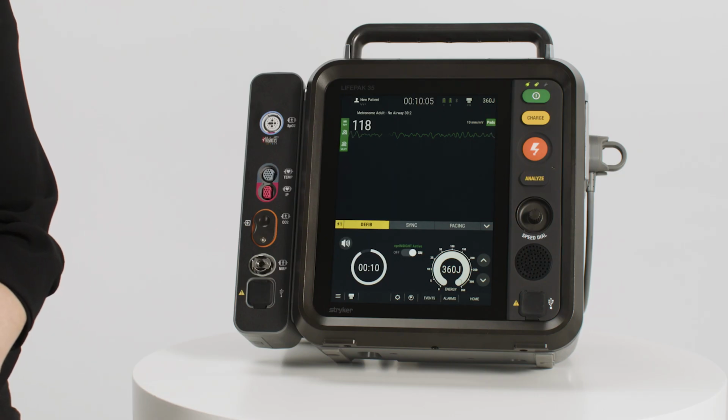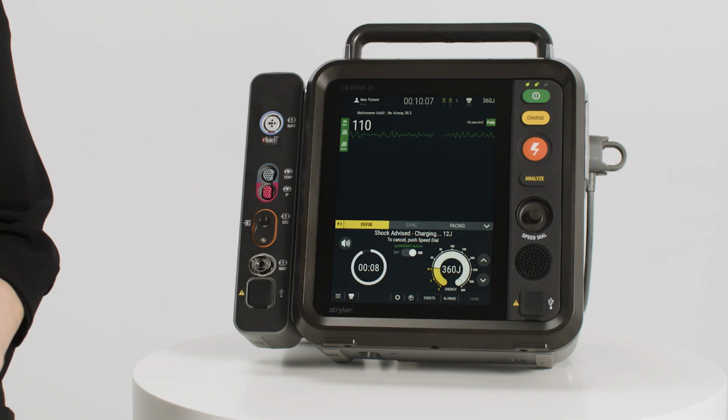When active, at the end of the CPR time, CPR Insight analysis will reach one of 3 treatment decisions: shock advised, no shock advised, or check rhythm ECG analysis inconclusive. All three of these decisions will have their corresponding messages appear directly on screen. If the CPR Insight decision is shock advised, a shock advised message will appear.